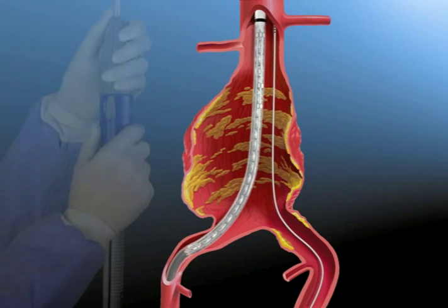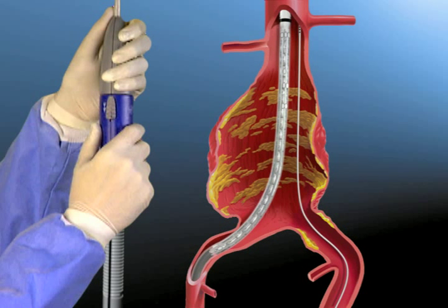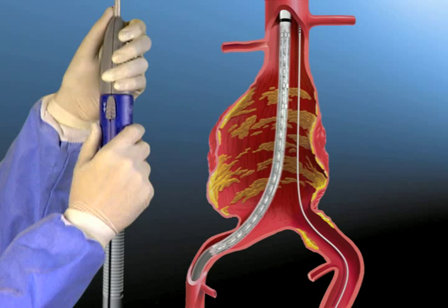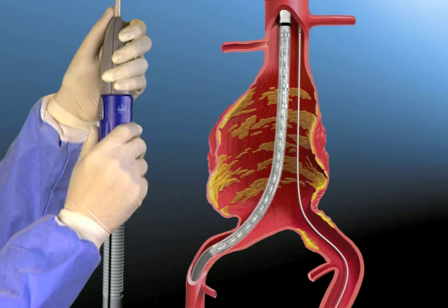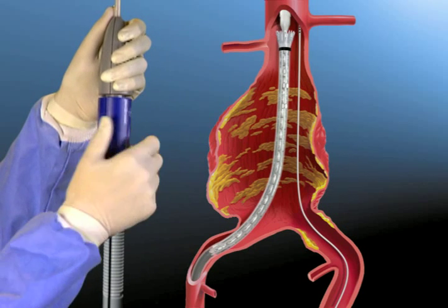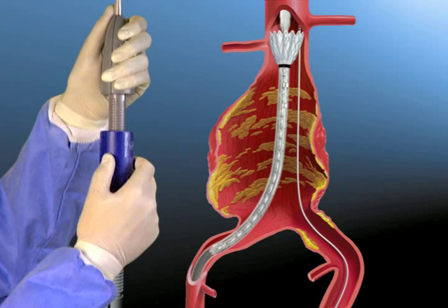To deploy the proximal end of the stent graft, first hold the delivery system stationary with one hand on the front grip, then slowly withdraw the graft cover by rotating the slider counterclockwise with the other hand.